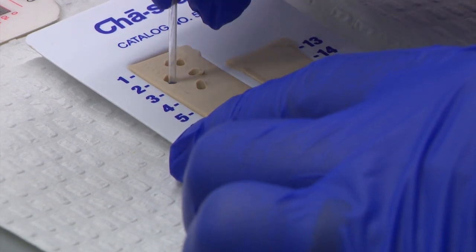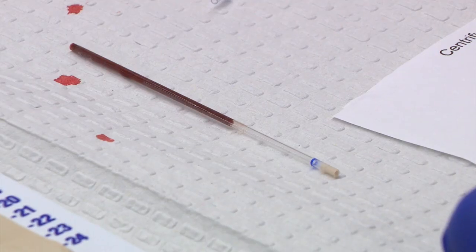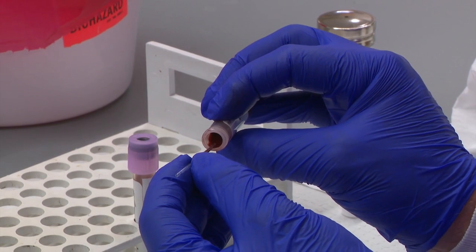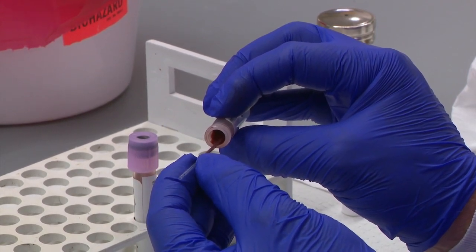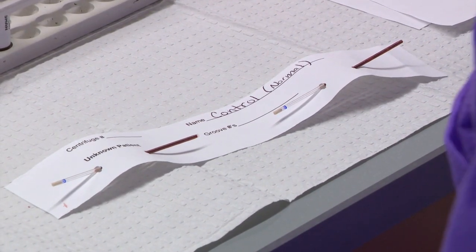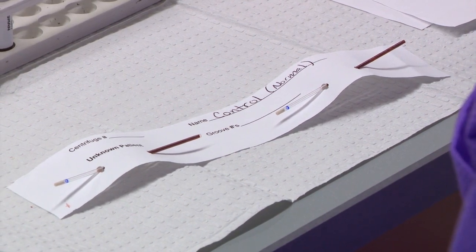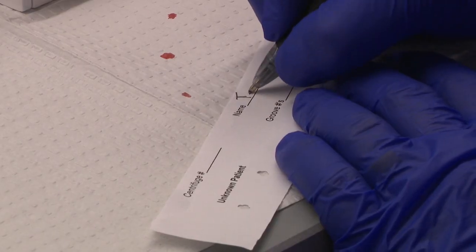Remember to repeat this step multiple times so there is a good amount of clay in the tube. Repeat this process again for the second tube. Place your control tubes in a different hematocrit sheet holder. Label the sheet with your name and patient name.